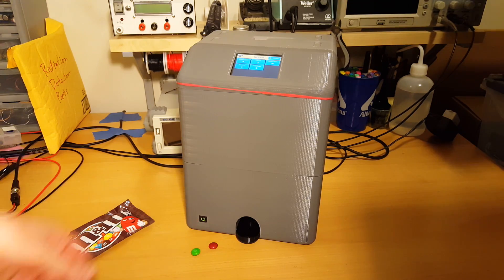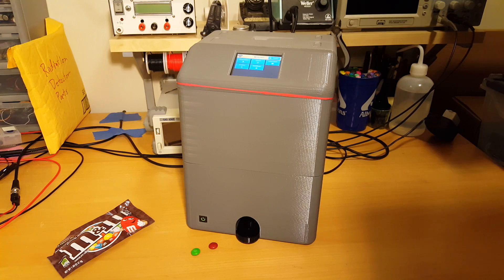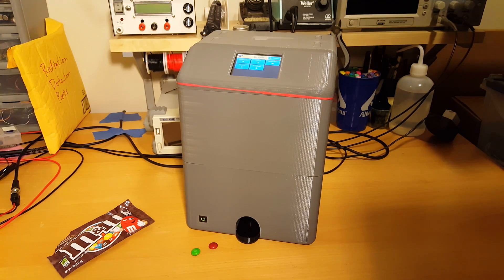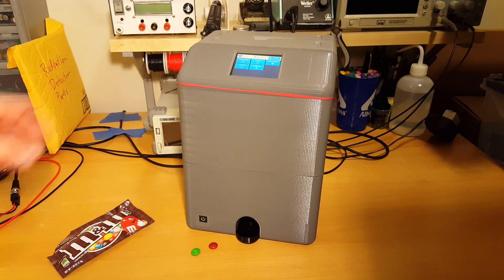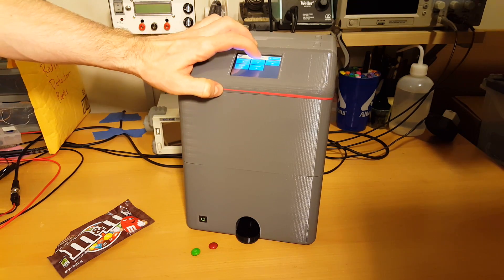I'm doing this because the M&Ms are colored and it's a lot easier to see them pop out with colors instead of just another white pill. So let's go ahead and load a couple M&Ms here.